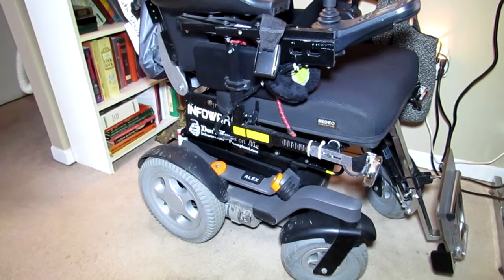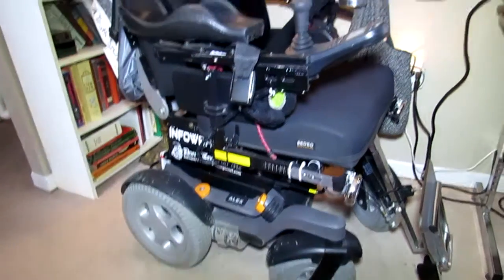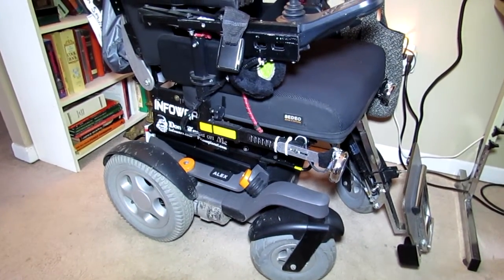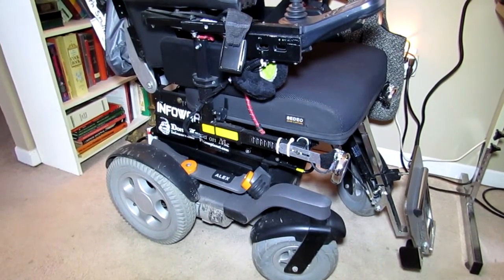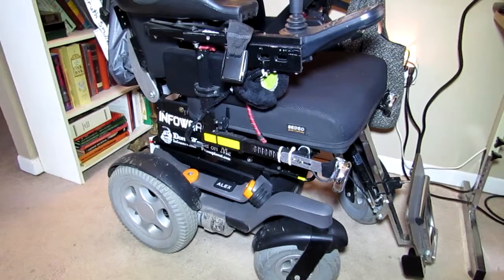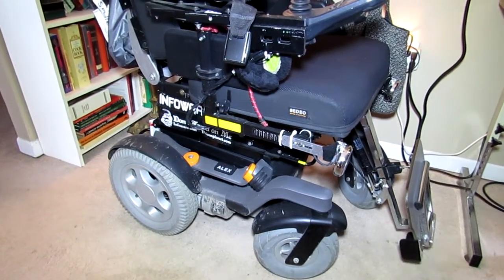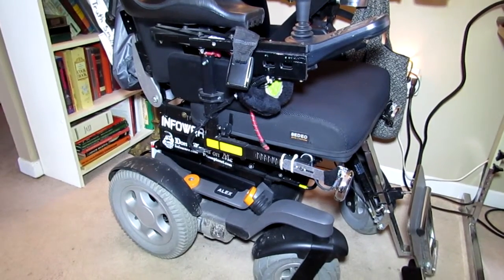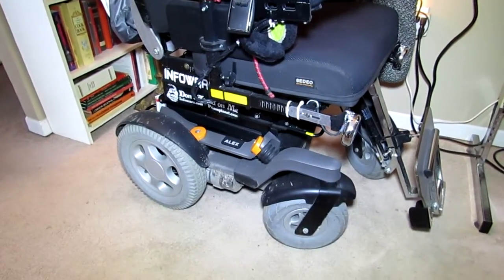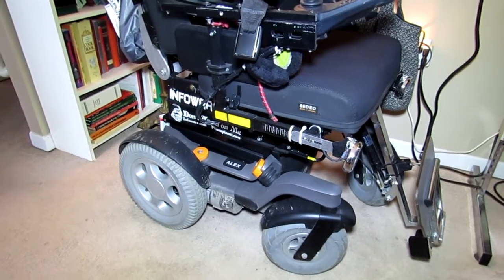This chair is about 800 pounds and moving fast — it hits you like 3,000 pounds of force. You've got a motorized vehicle driving down the sidewalk that loses control when the caster goes. In Canada there are no regulations — they can sell anything to disabled people and nobody cares. The disabled have absolutely no rights. Everyone else in society is protected by civil and criminal law against negligence, incompetence, and theft — but the whole wheelchair industry here is corrupt, the government is corrupt, and they just don't listen.